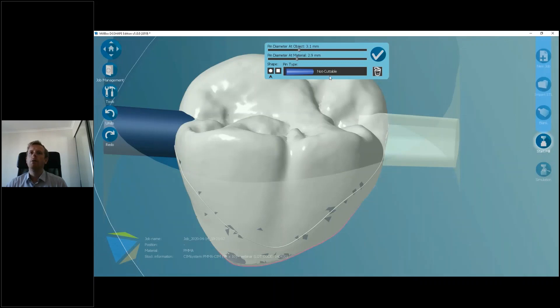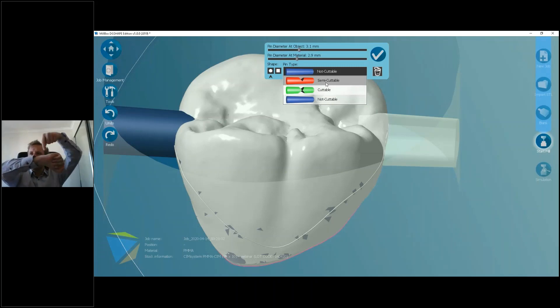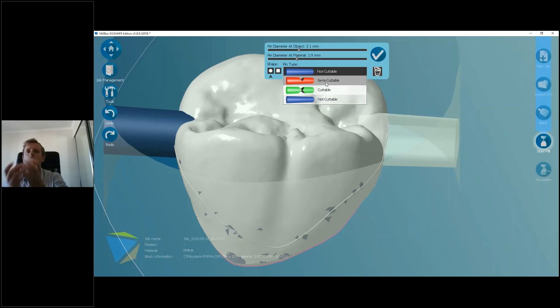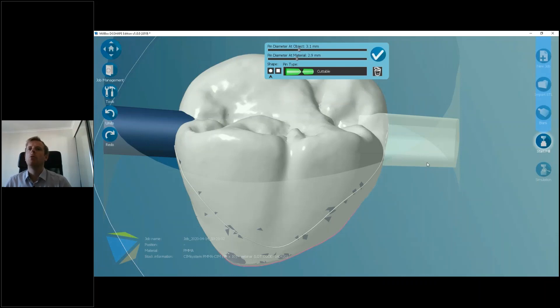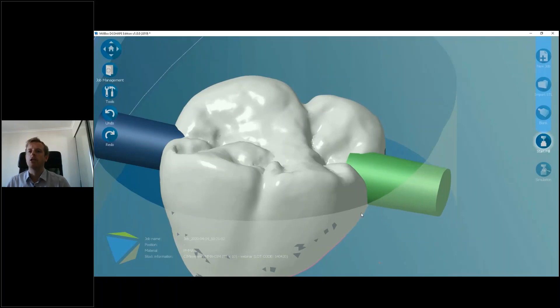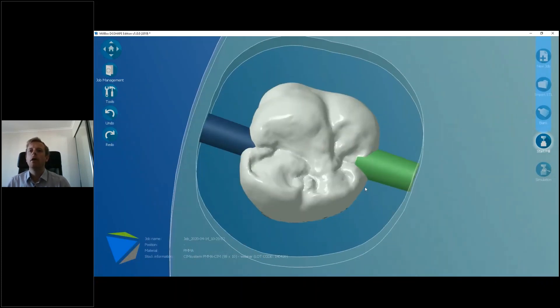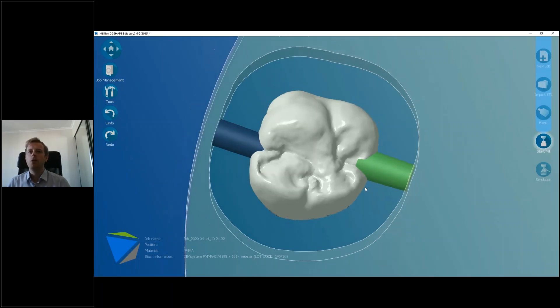We've got options to change the pin type from non-cuttable to semi-cuttable or cuttable. Semi-cuttable means it cuts the sprue halfway through so you can push the crown with your thumb and it'll pop out after milling. Fully cuttable means after milling it comes back and completely cuts the sprue off — not ideal if you want to recover anatomy or the margin line, but useful for large bridges where you might have a sprue on the facial aspect of a central incisor that you want cleaned up afterwards.